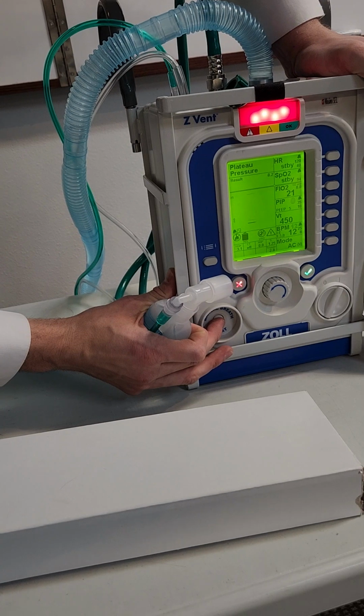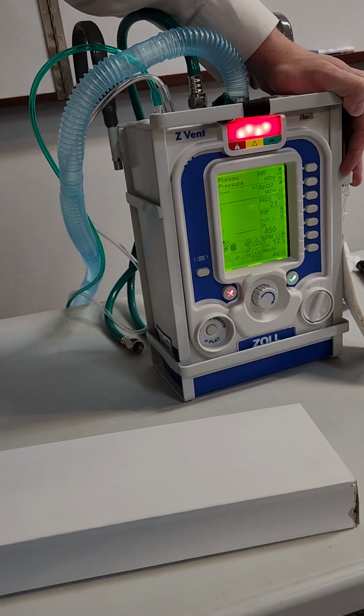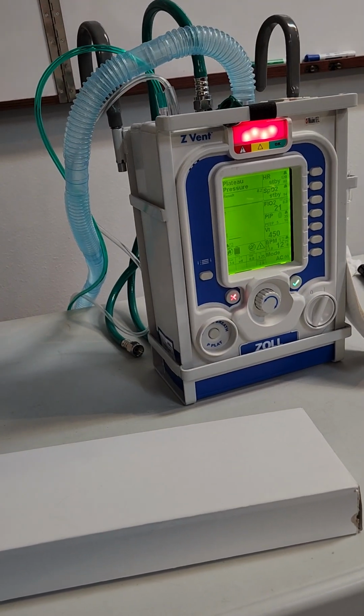Does this not have a sound alarm? There's no audible alarm? Oh, it just lights up? It'll be audible. Oh, okay.